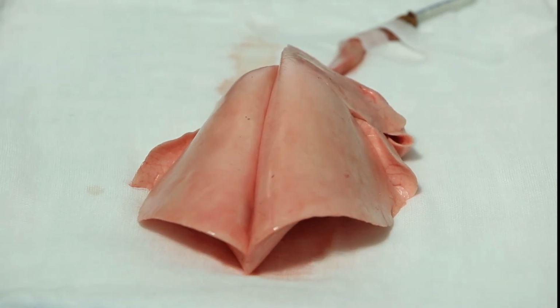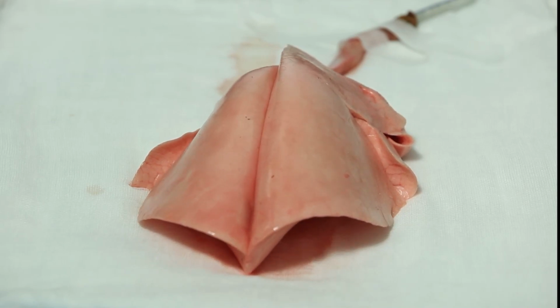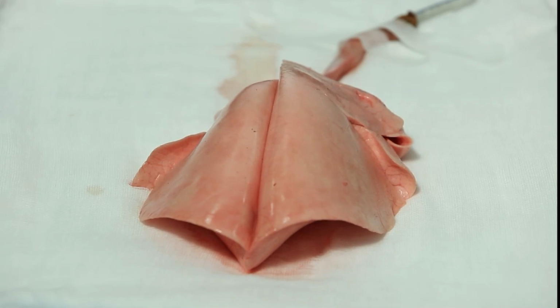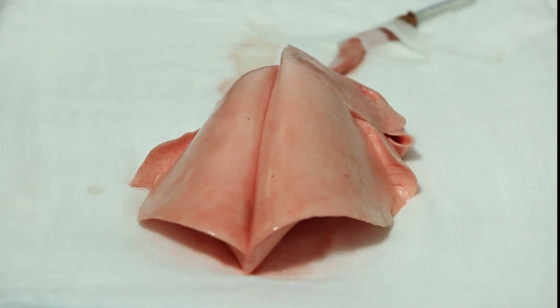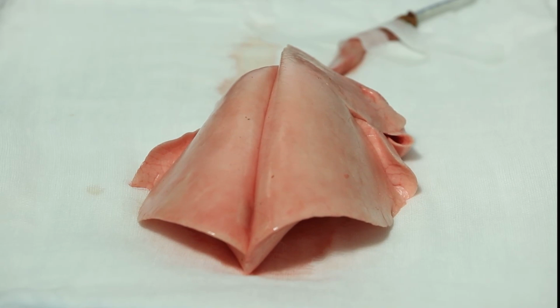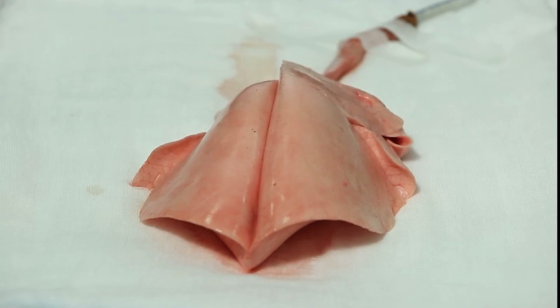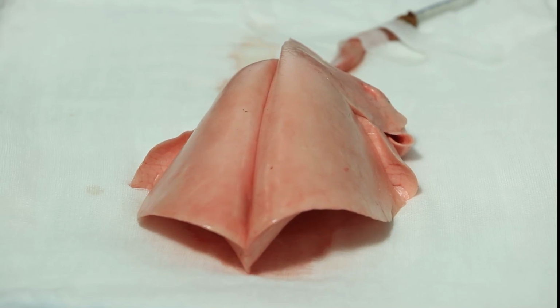If your requirement of plateau pressure is going high, or if your patient's driving pressure is increasing beyond 30, that's the indication of lung recruitment. So, with Atlan, once you set PEEP and once you set inspiratory pressure 13, this inspiratory pressure 13 will be delivered above the level of PEEP, and once you change PEEP from 5 to 10, automatically inspiratory pressure increases, keeping the driving pressure the same.